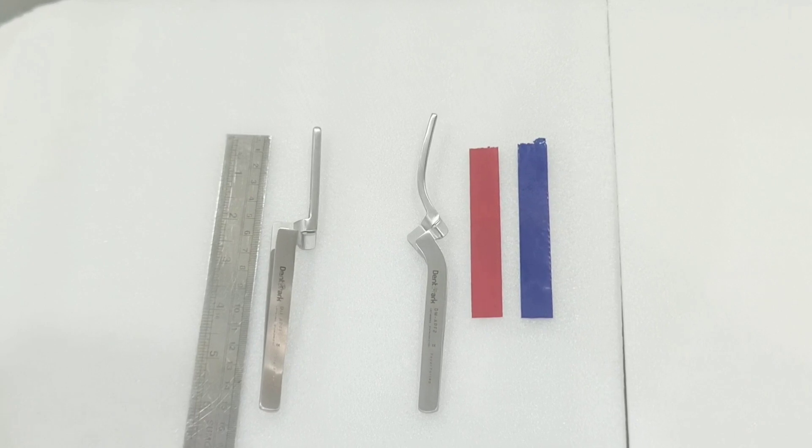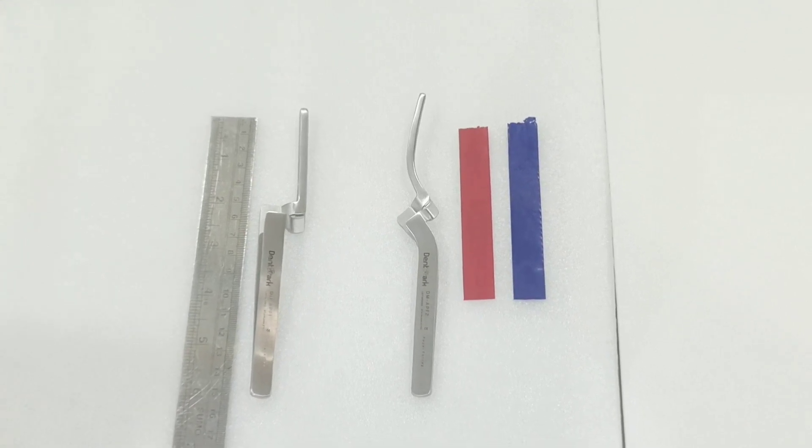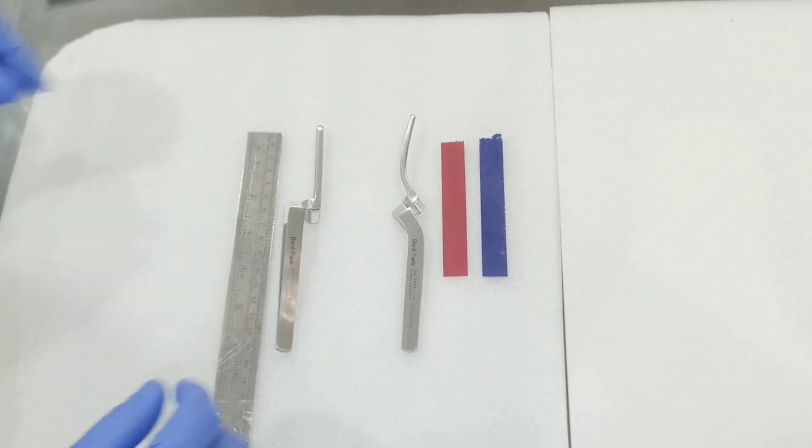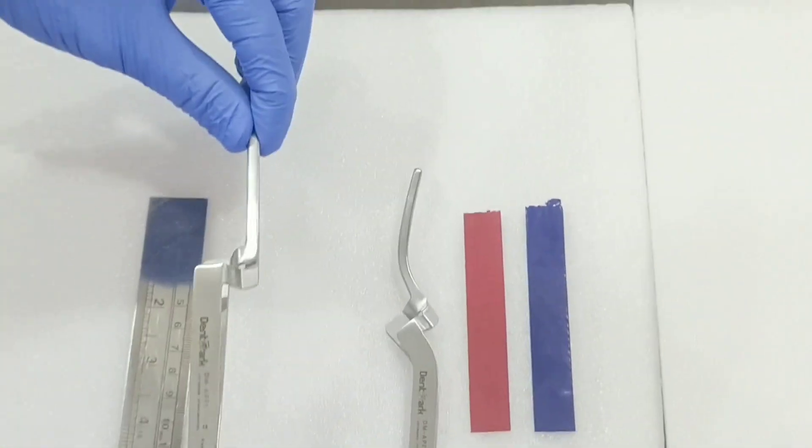It provides complete coverage of the restoration or teeth to be verified. This instrument is 15 centimeters long.